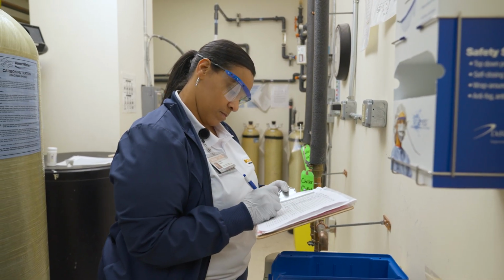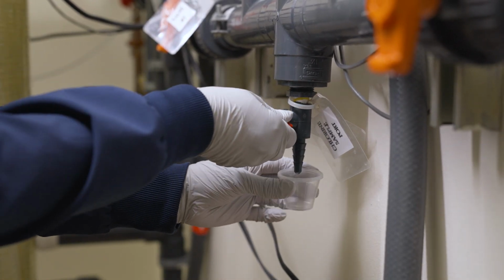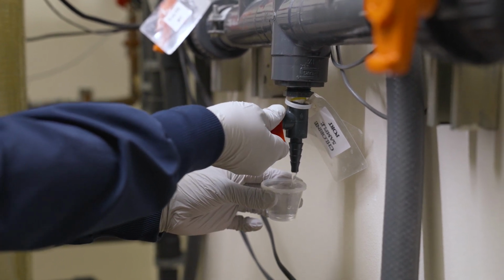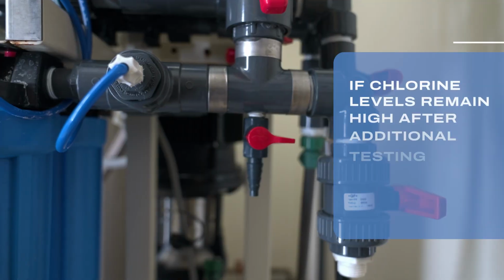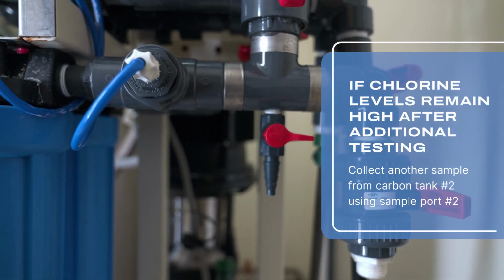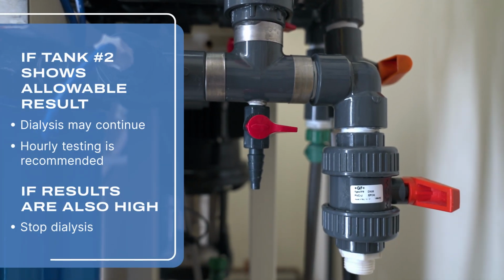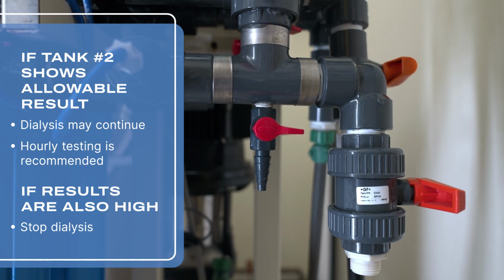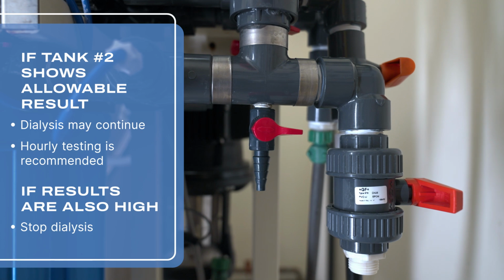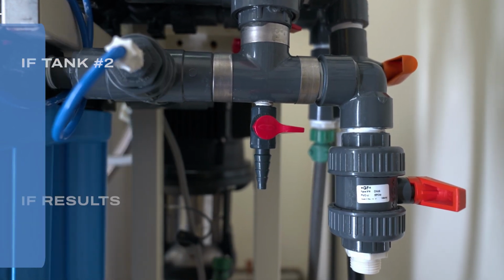Notify the appropriate personnel if results exceed 0.1 parts per million. Also, check your policy procedures for what to do in the event that chlorine is above the permissible levels. Typically, the test must be repeated again. If chlorine levels are still high, collect another sample from the carbon tank number 2 using sample port number 2. If tank number 2 shows allowable chlorine levels, the machine can continue to operate. More frequent testing, at least hourly, is recommended. In the event that tank number 2 also tests high, the dialysis using this machine should be stopped.